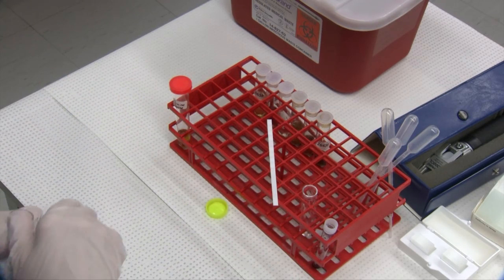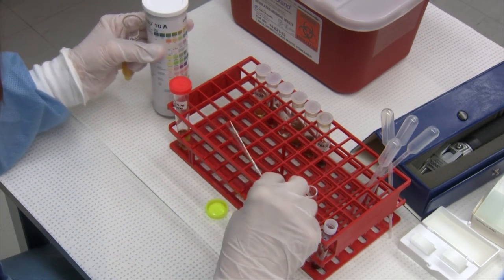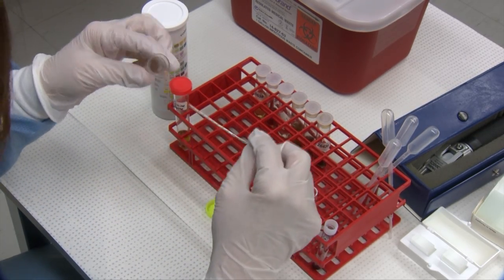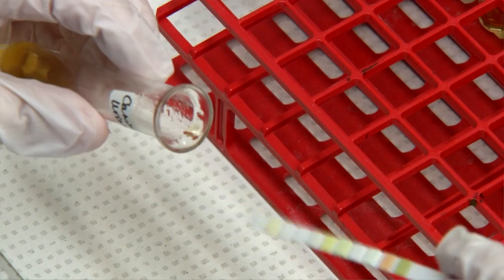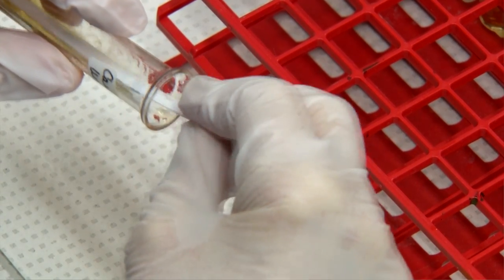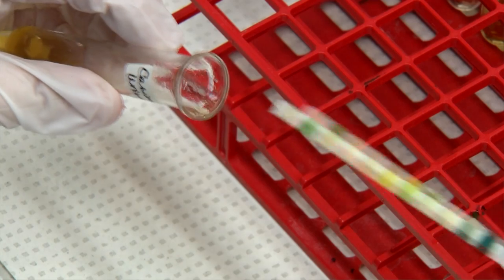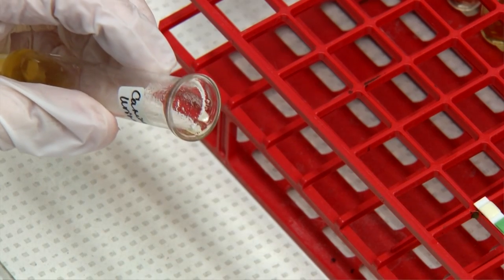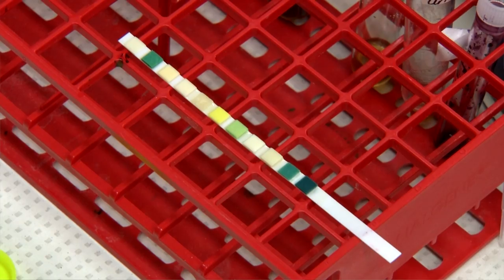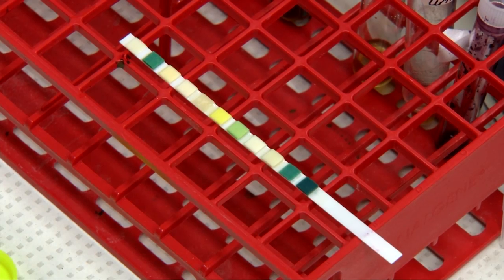Just tip your urine forward, let it run up the length of the strip, and tilt it back. It's a quick one-second dip. Then you want to let your strip sit for 60 seconds, and after 60 seconds you can read all of your results.